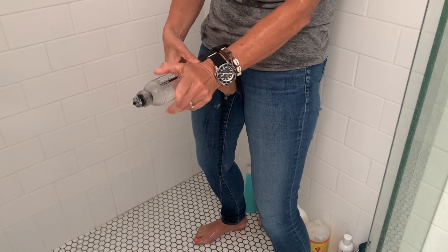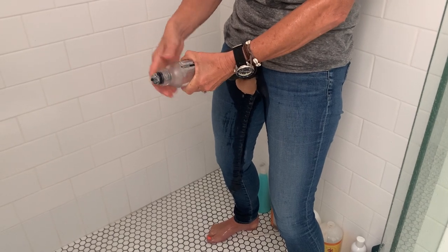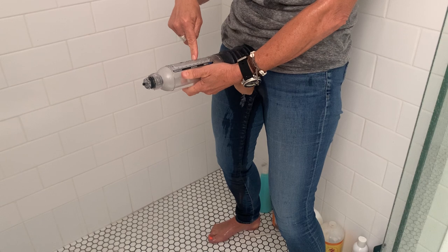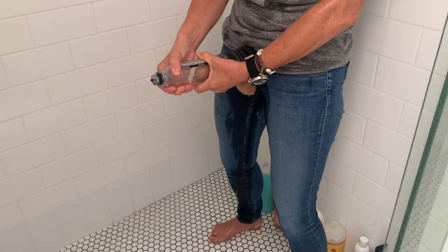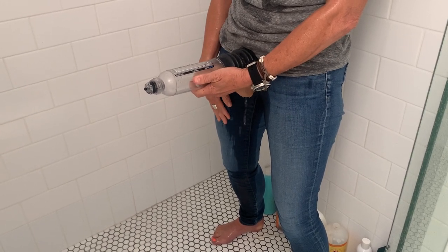Then you let go of the toggle and pump it like so, and water comes out the end — that creates a vacuum and Geoffrey, or whatever you like to call your little friend, will expand in the tube. You just pump him up until he gets to about 60 to 80% erect.